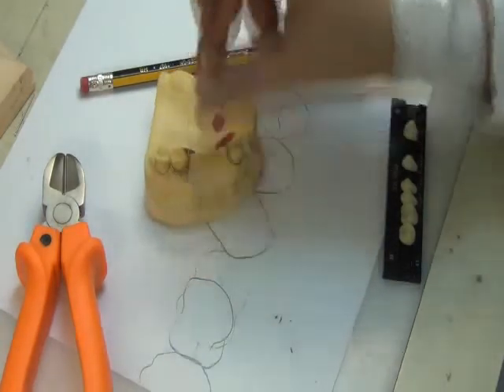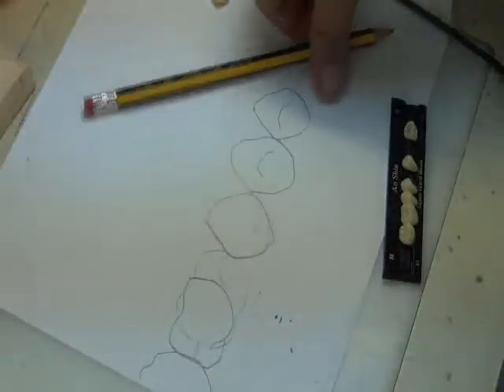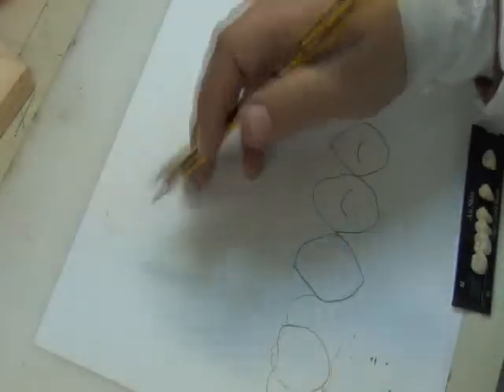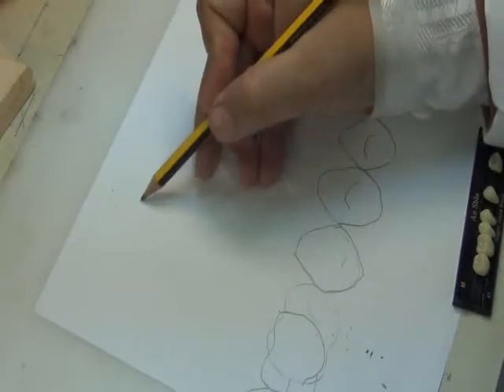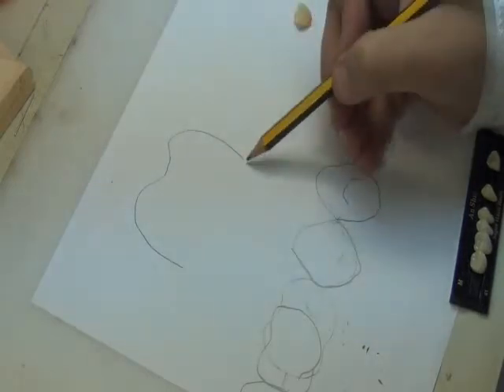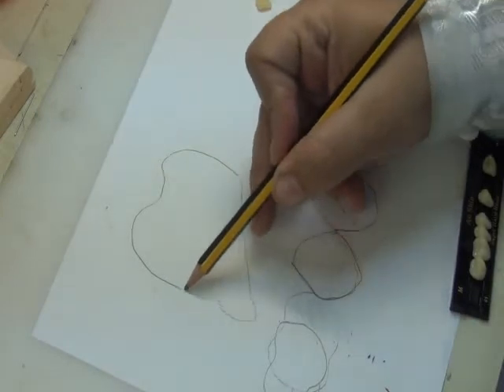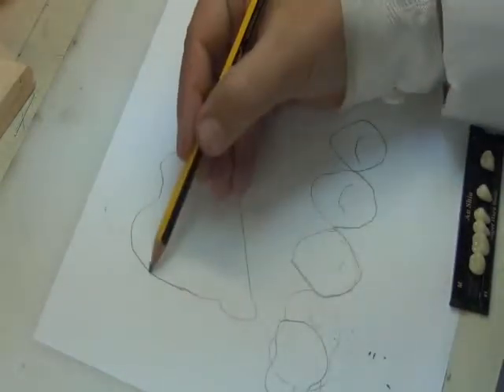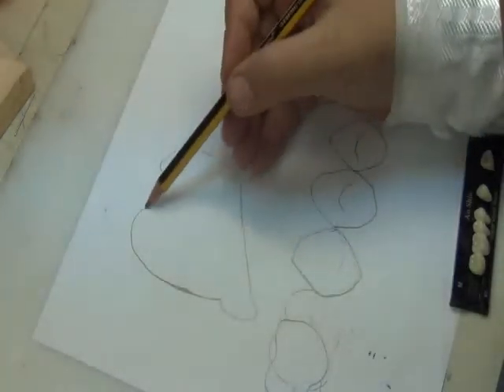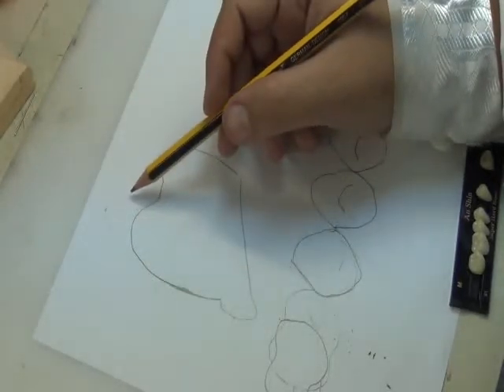And how do we trim it? We trim it from the lingual side, and we keep it trimming in a shell shape. So if I'm looking at this image now, if you can notice this drawing here, okay? Suppose that the tooth is like this. This is the buccal, this is the lingual. And then you know that acrylic teeth come in this shape, with a neck and then bulge. So this is how the teeth come from the manufacturer. Okay? So I'm trying to fit in this tooth, and I find it's high. It's hitting the opposing arch, and I need to trim.